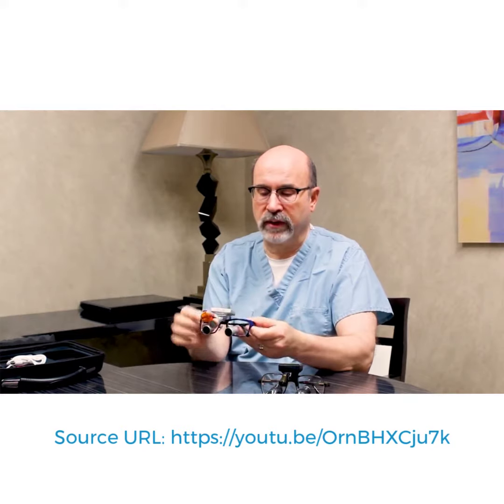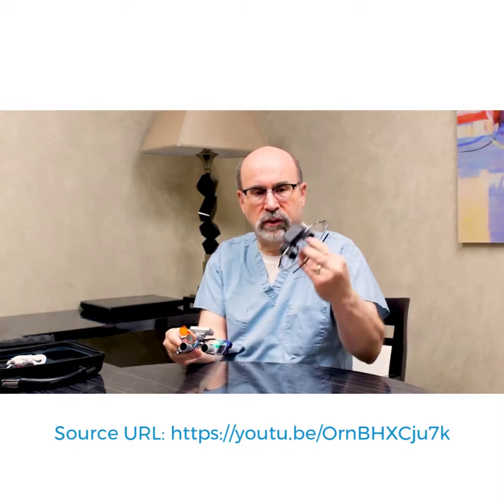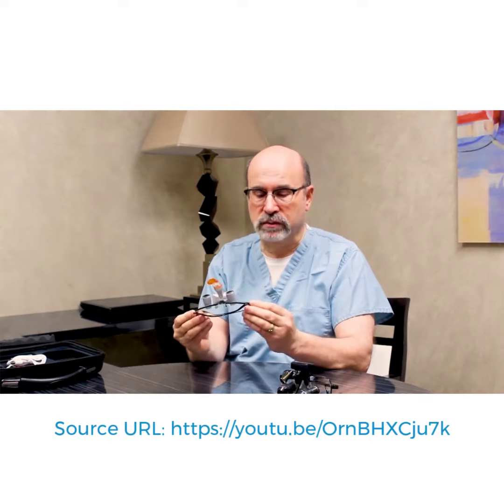I tried these on. The weight is incredible. They've got a great extra light on here. Lights are a key thing — no wire anymore. I've got the cord-free lights as well. This one's even lighter weight. It is simple to use — just tap on and off. So it's a distinct advantage, this brand.